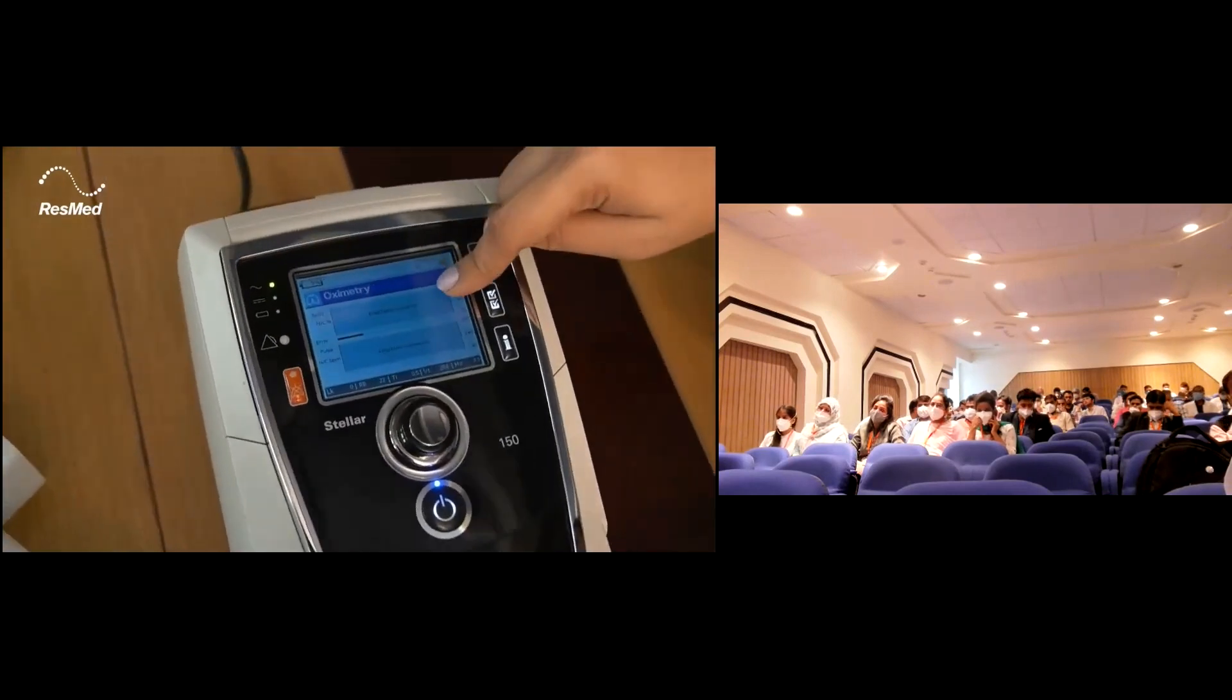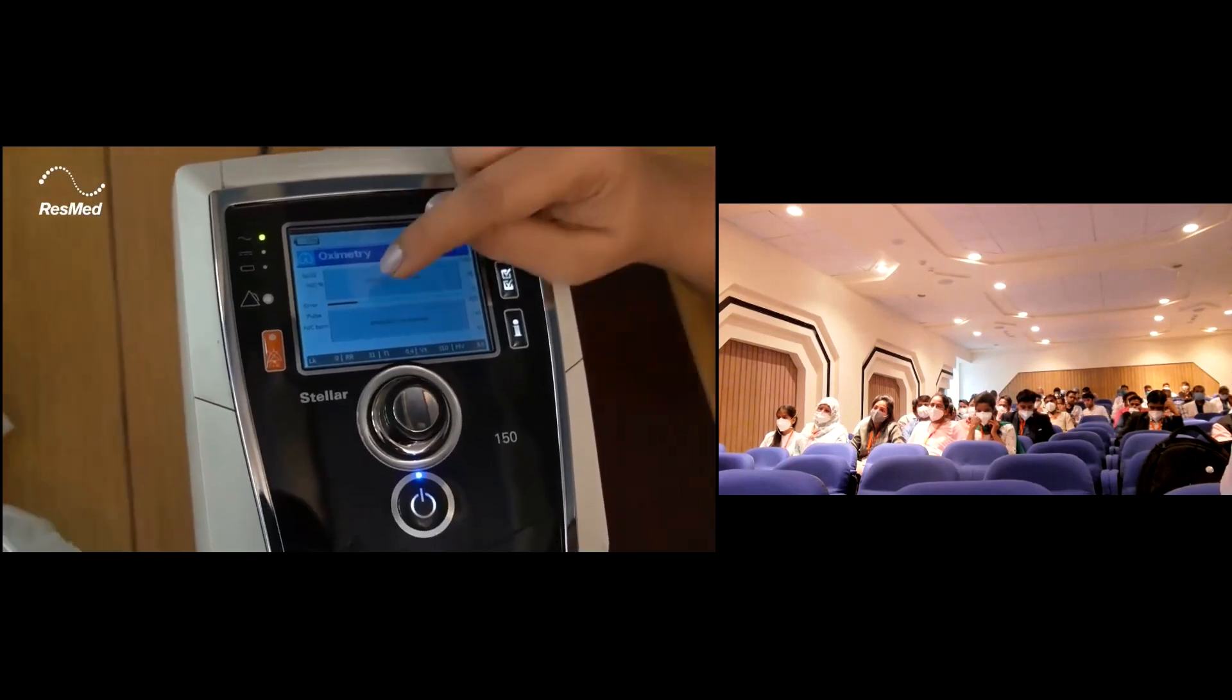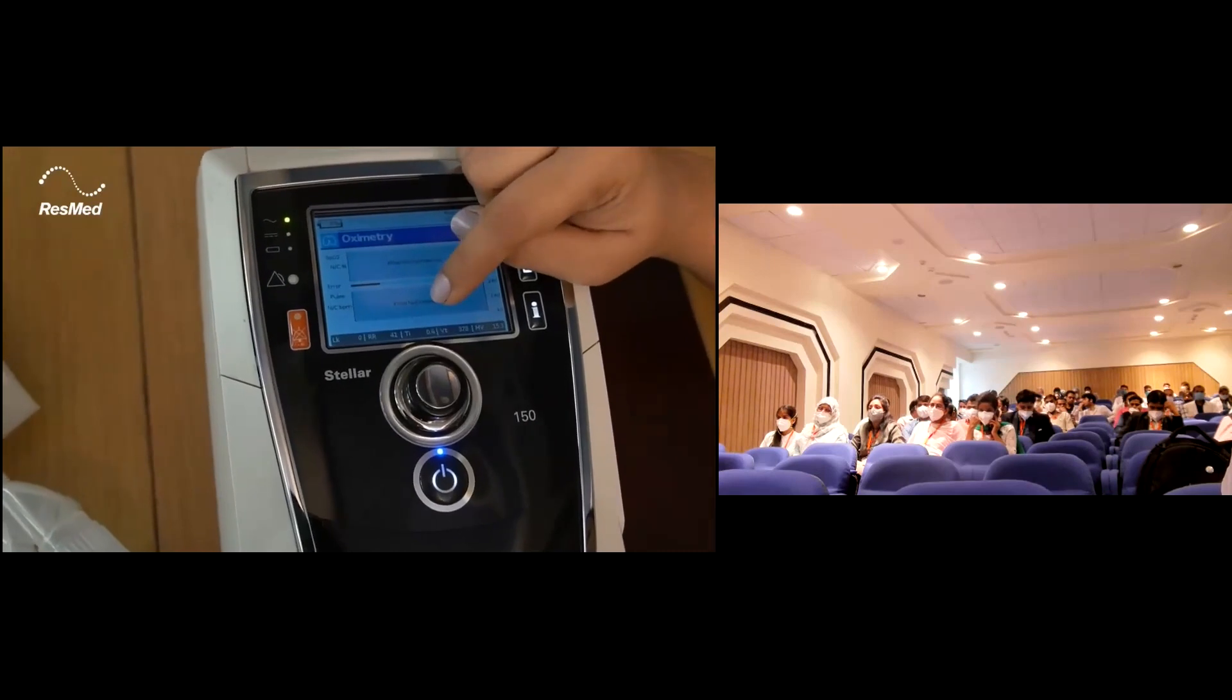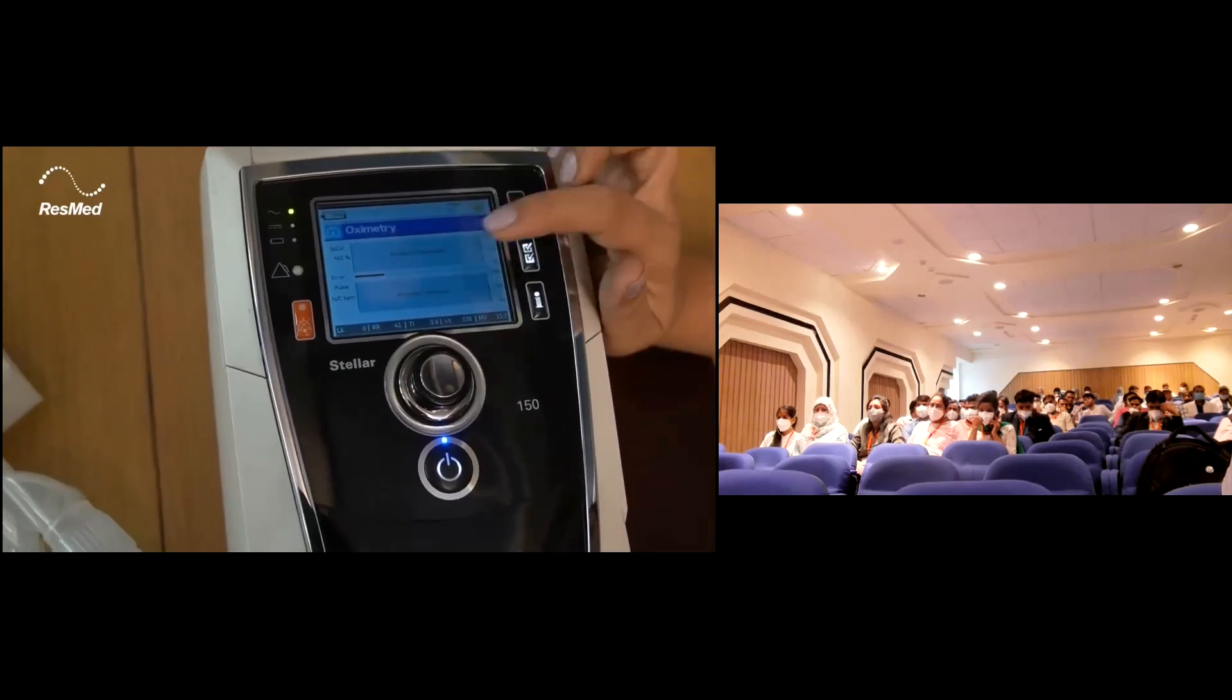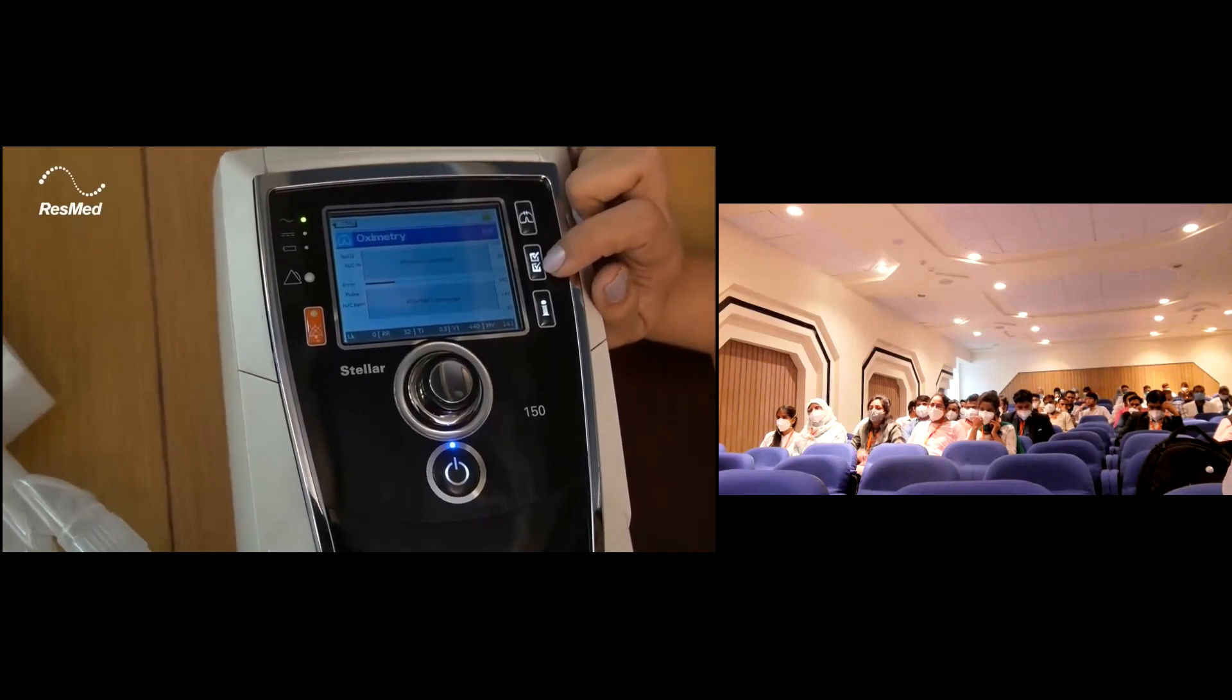In the last page, you can see the oximetry data, only if the SpO2 probe is connected. You can see the SpO2 data and pulse oximeter data. This is about the monitoring menu. I have finished the settings menu in the first part itself.